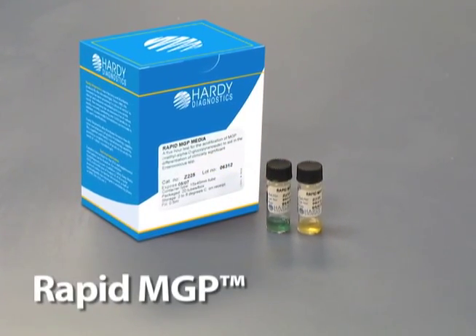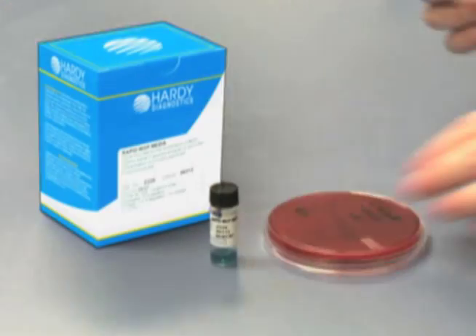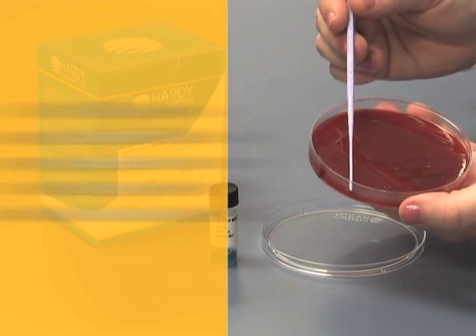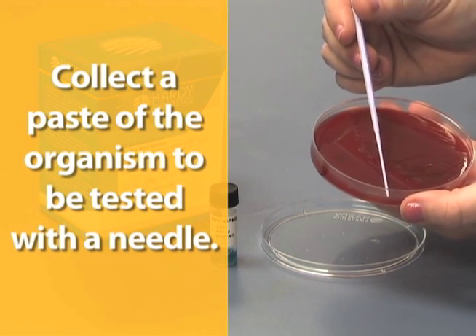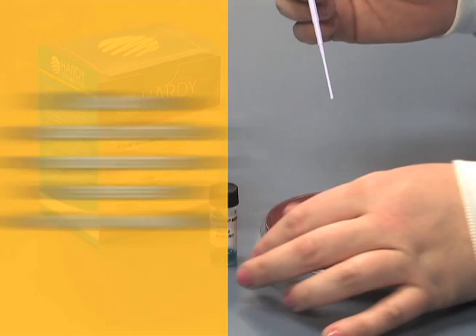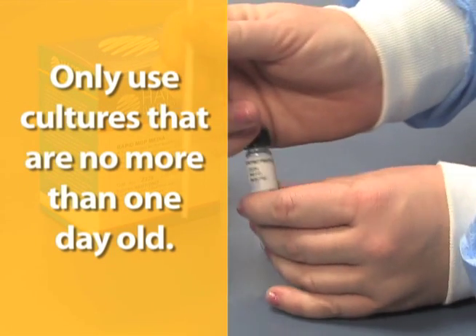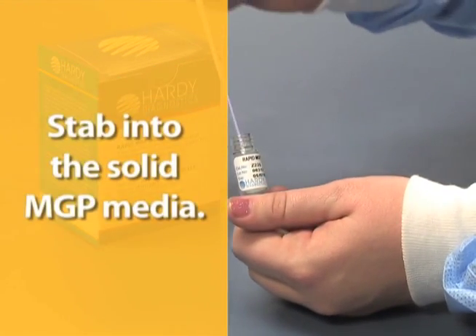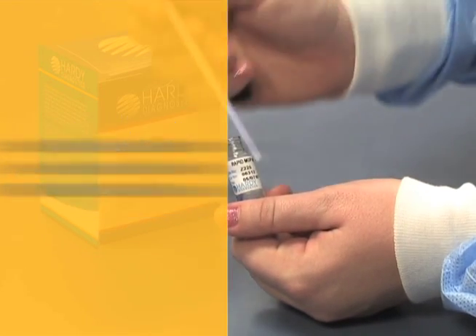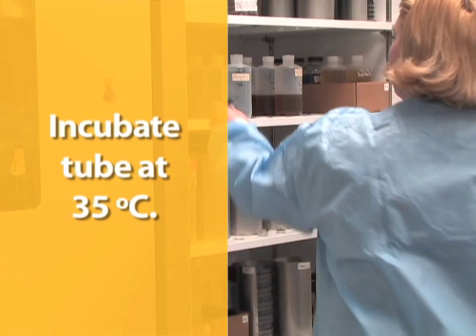The Rapid MGP will do this within five hours. The procedure is very simple. Using your needle, collect a paste of the organism to be tested. Only use cultures that are no longer than one day old. Stab into the solid MGP media, then incubate the tube at 35 degrees centigrade.